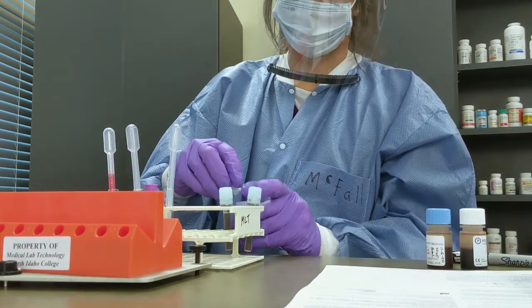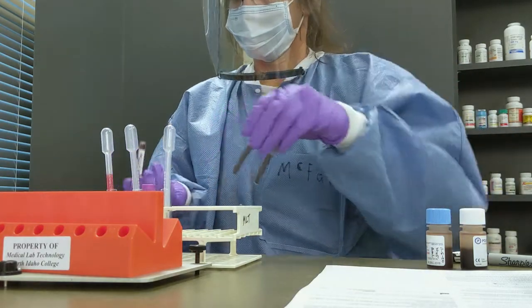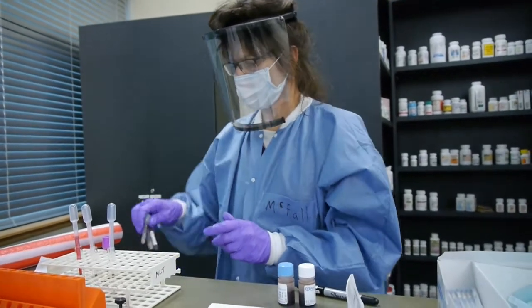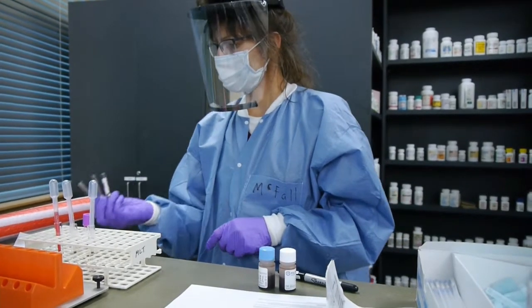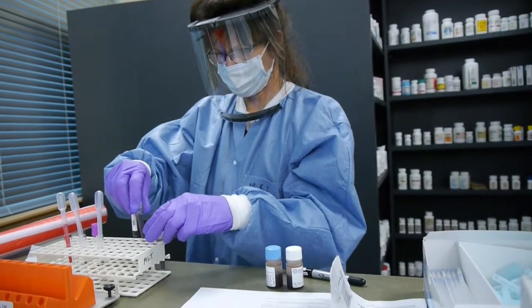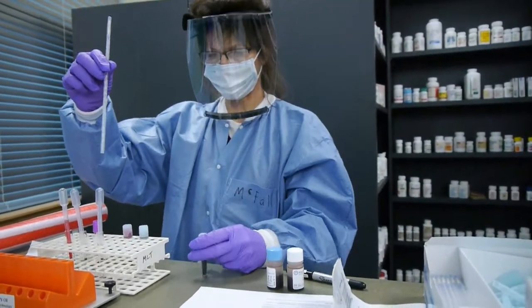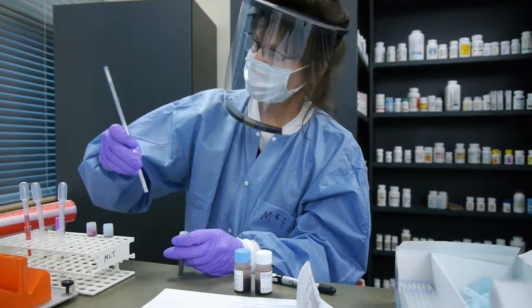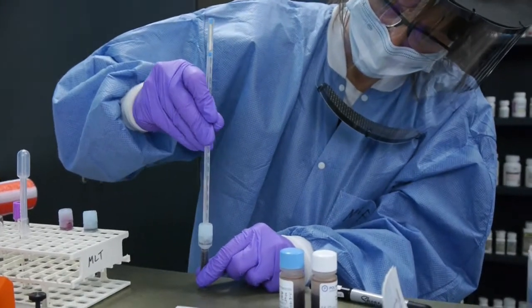You have to make sure your reservoirs are labeled and well mixed. The next step is probably the most difficult: when you put the disposable pipette into the reservoir, it takes a certain amount of careful, gentle pressure to get the blood all the way up, because you're piercing the very top part of the reservoir lid. It's a push-and-twist motion.